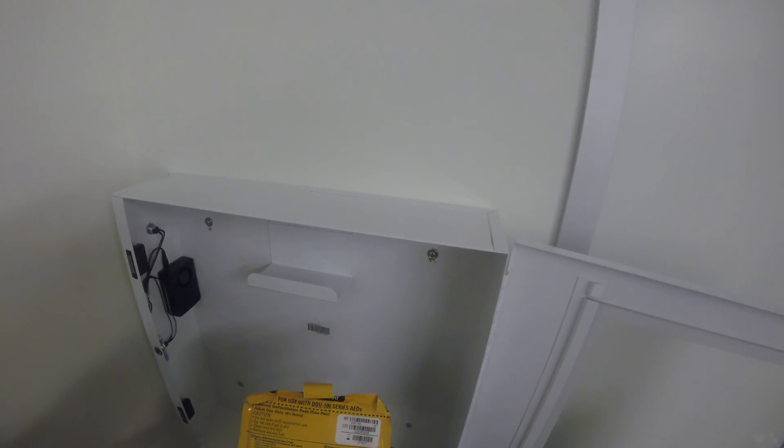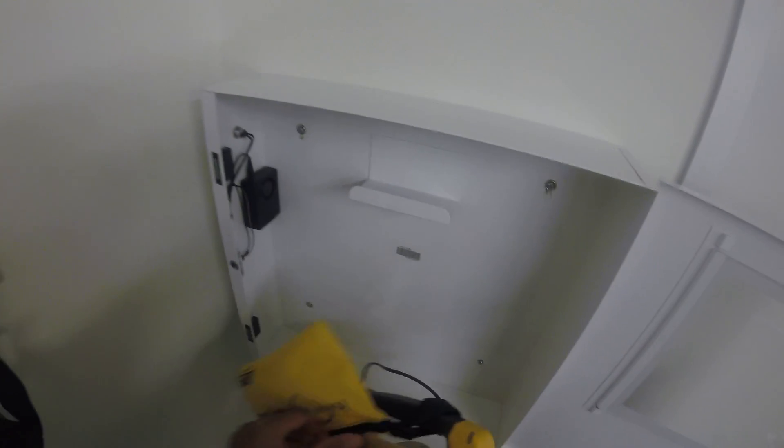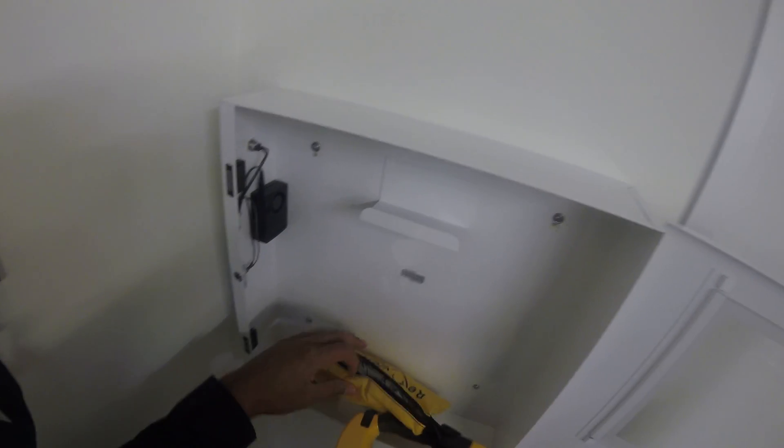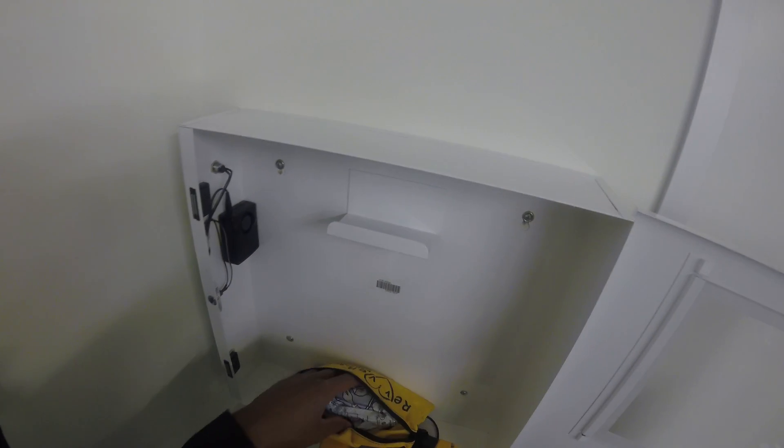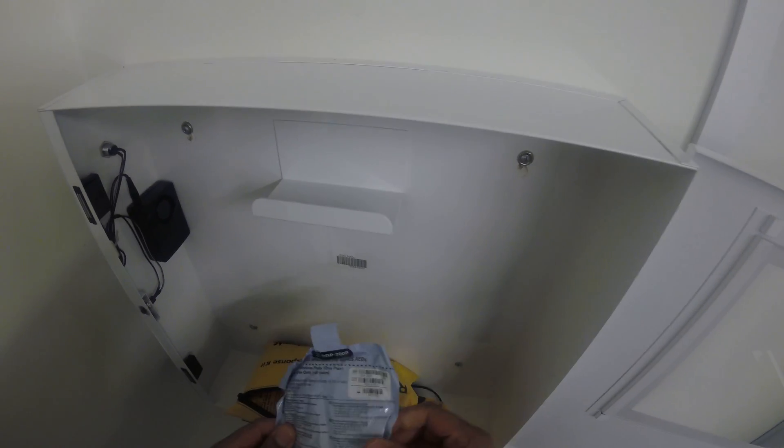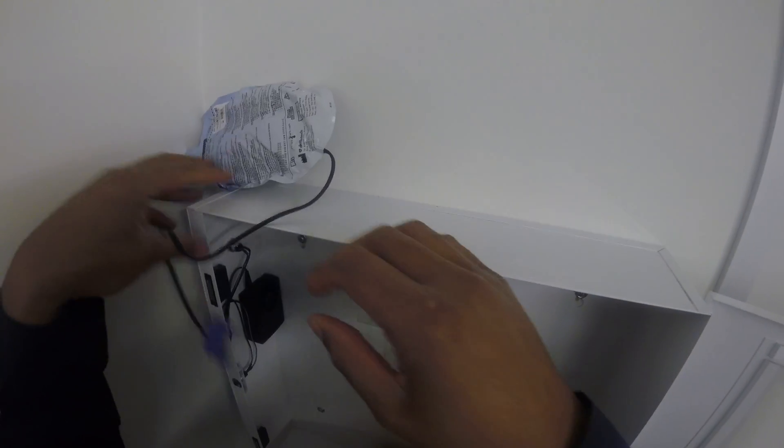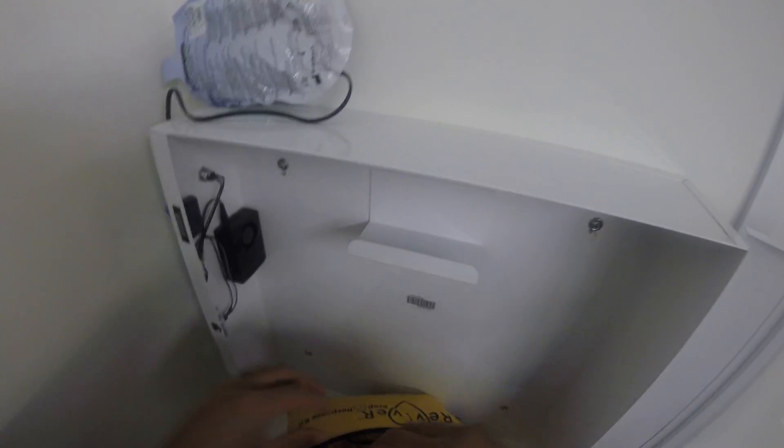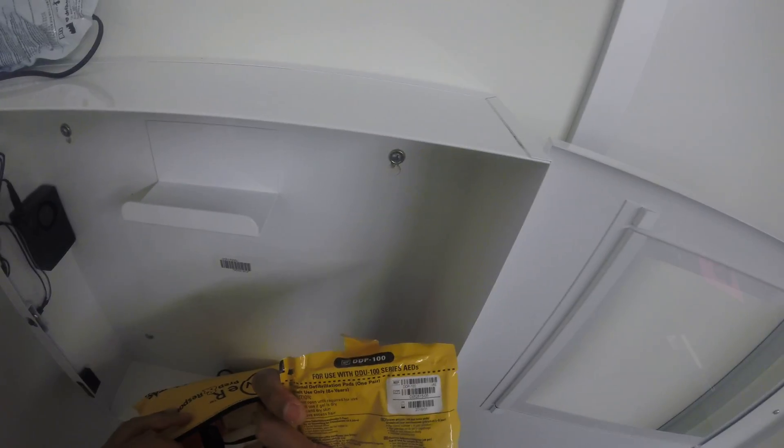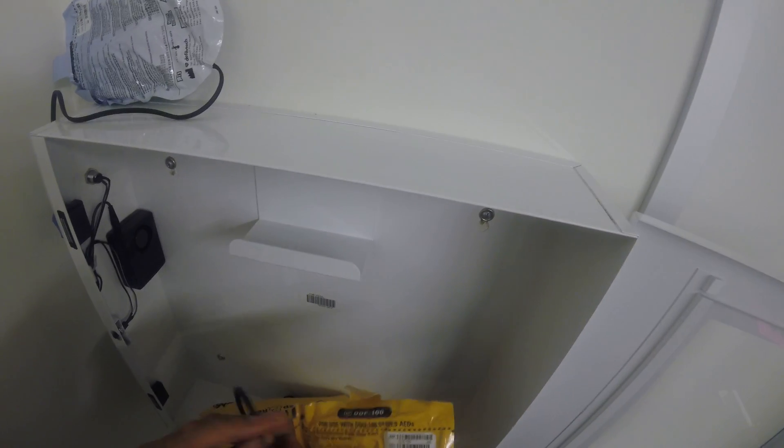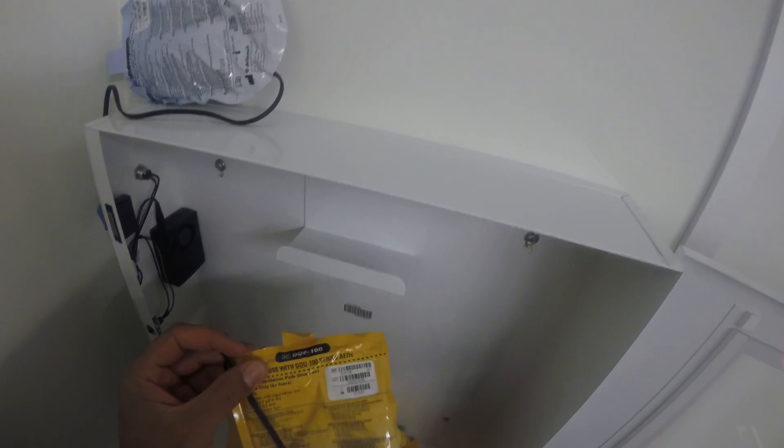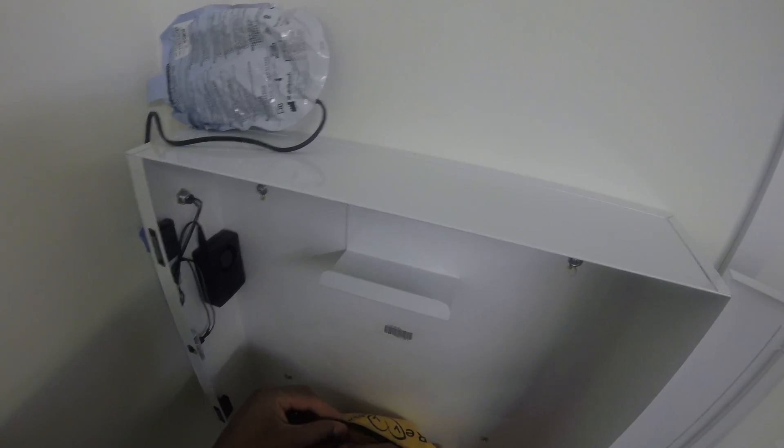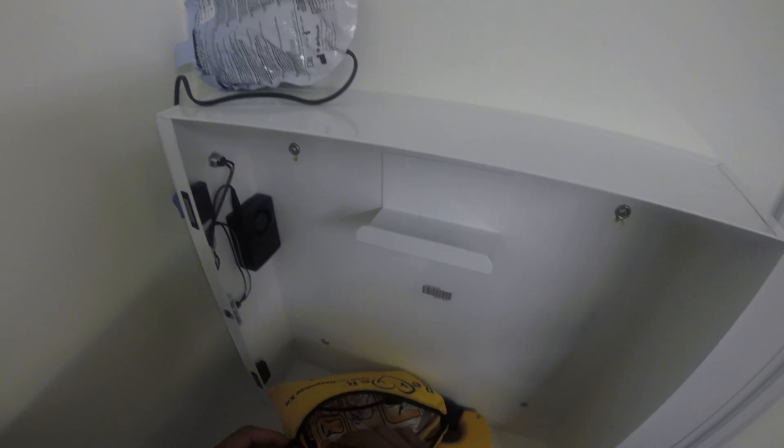Now I'll check the pads on the inside to make sure that these are up to date. This one right here is expiring this month, so we'll go ahead and take this one out. There's another pad in here that expires at the first of the year, so in a few months I'll replace this, probably next month or so. We'll put that back in there.